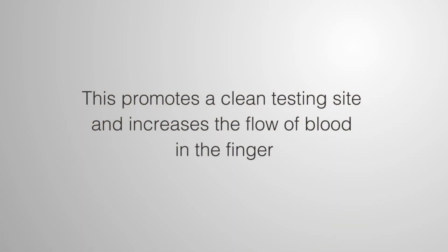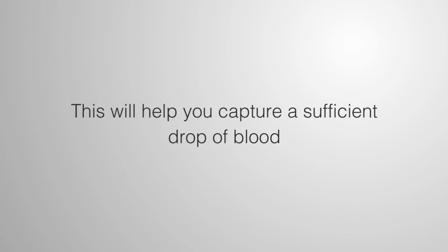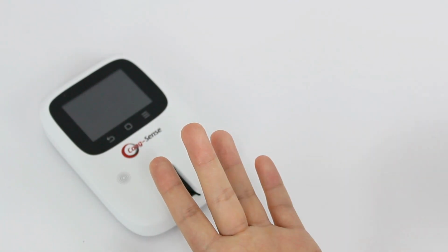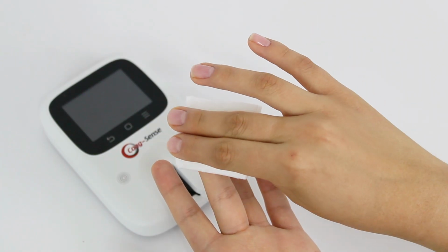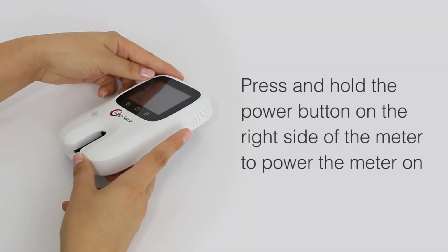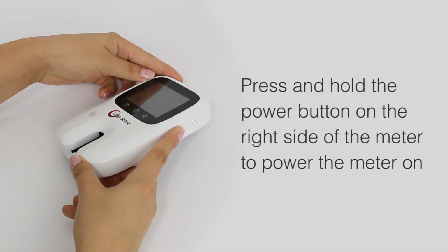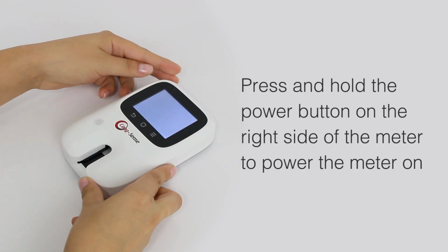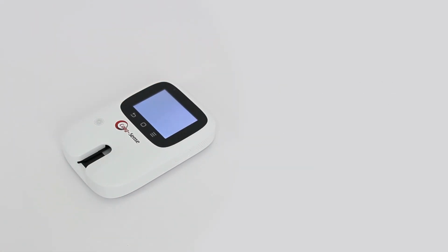Not only does this promote a clean testing site, but increasing the flow of blood in the finger will help you capture a sufficient drop of blood. If an alcohol wipe is used, the finger must be completely dry, as residual alcohol will affect results. Press and hold the power button on the right side of the meter to power the meter on. Place the meter on a stationary, level surface for testing.